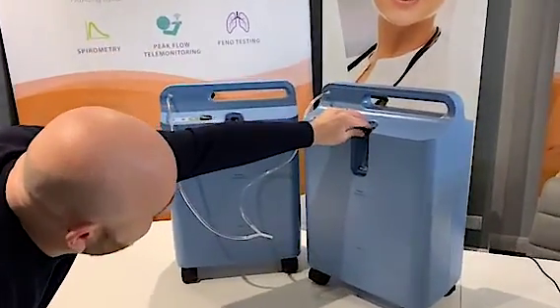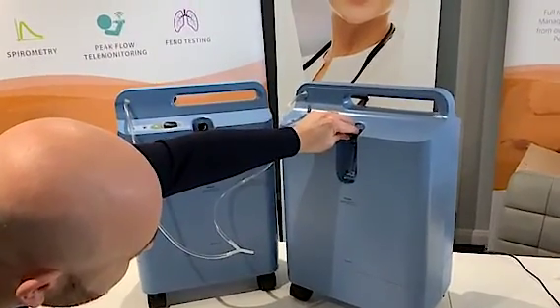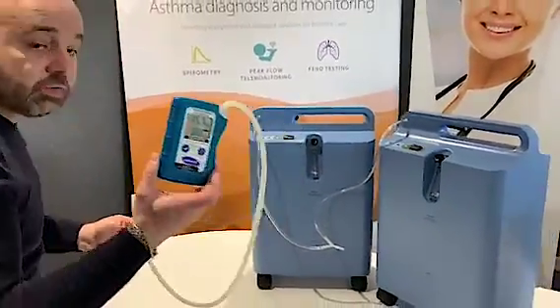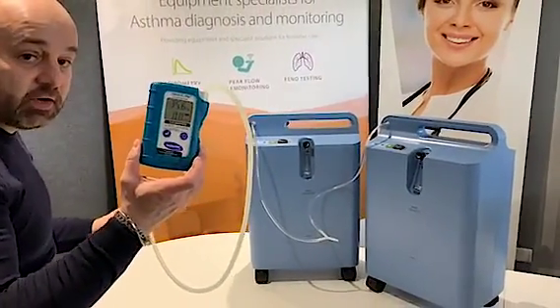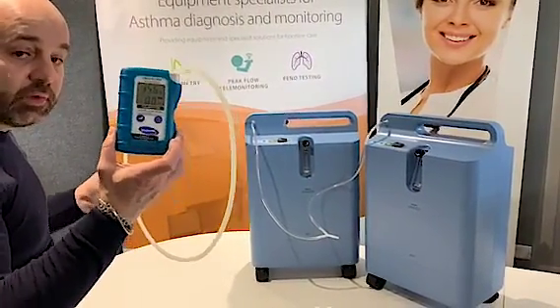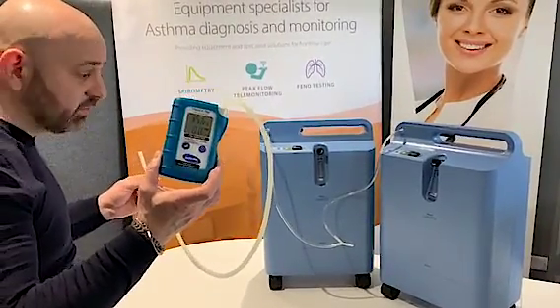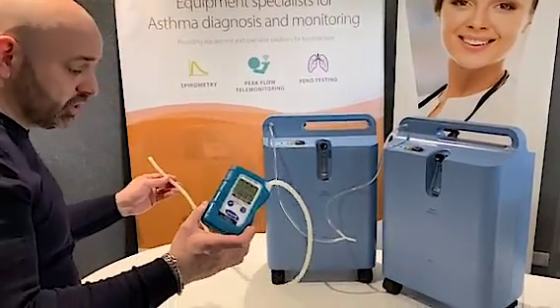We're going to put the flow meter up to five on each unit. Here we have an ultrasonic flow meter and oxygen purity monitor, so we will be checking the purity and the flow of oxygen coming out of the two machines.